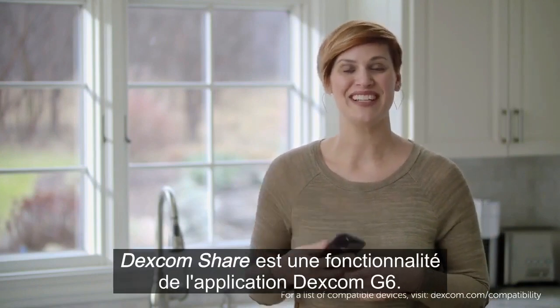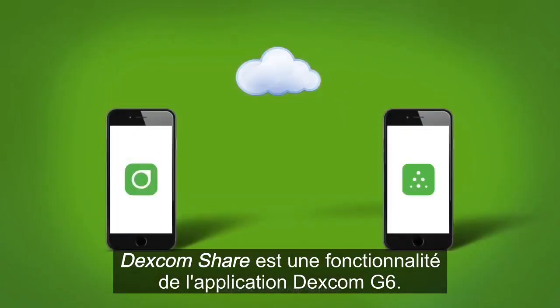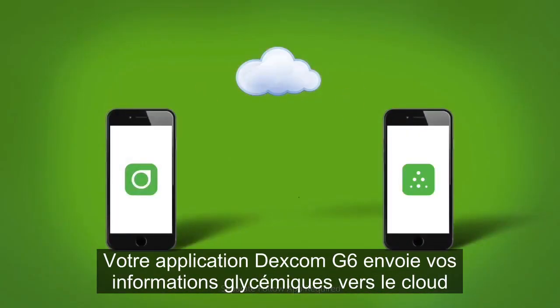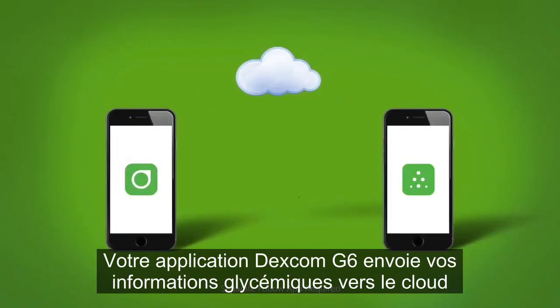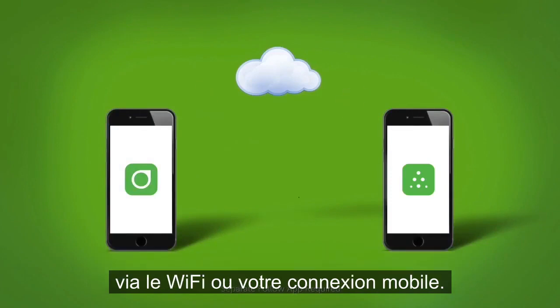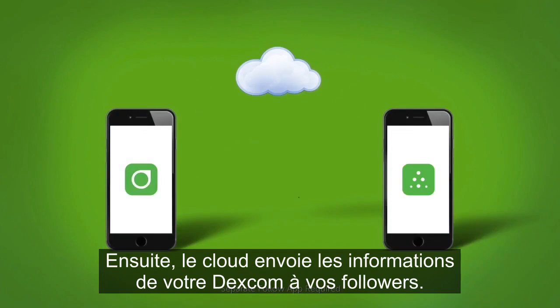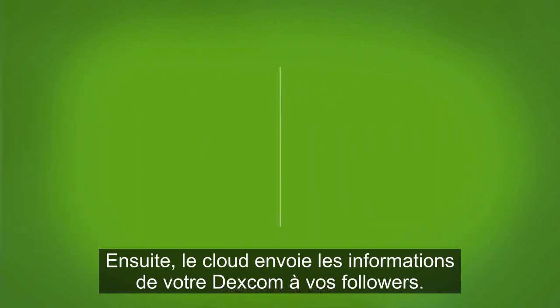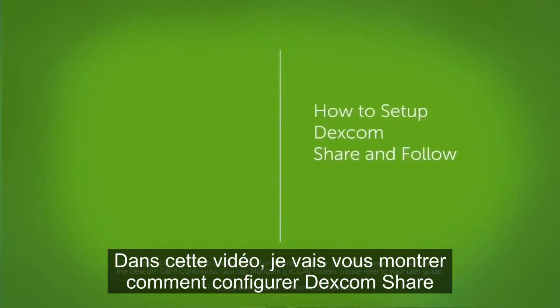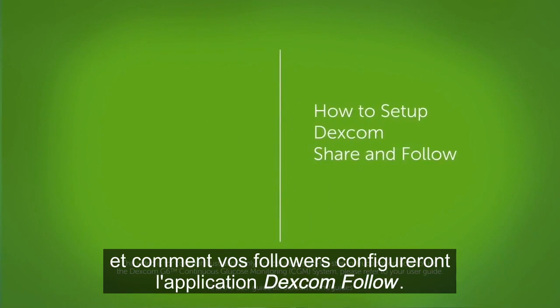Dexcom Share is a feature of the Dexcom G6 app. This is how it works: your Dexcom G6 app sends your glucose information to the cloud via Wi-Fi or your mobile connection. Then the cloud sends your Dexcom information to your followers.